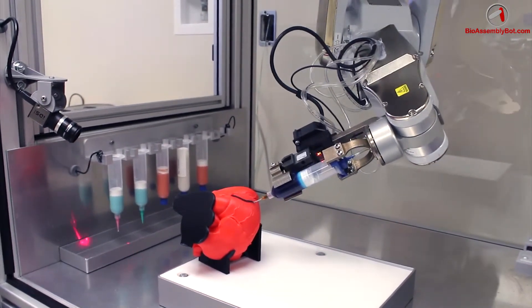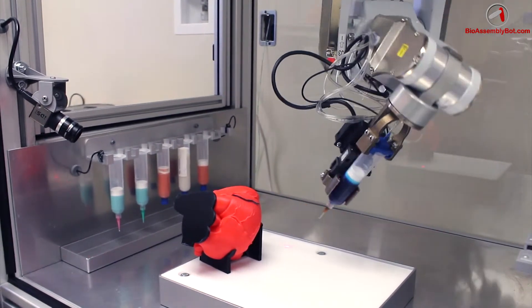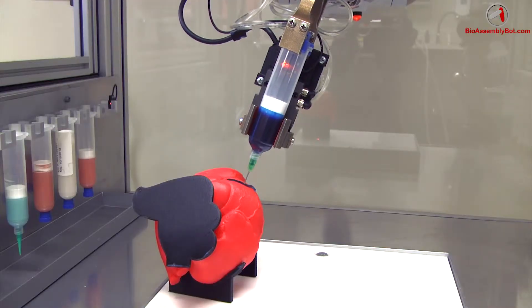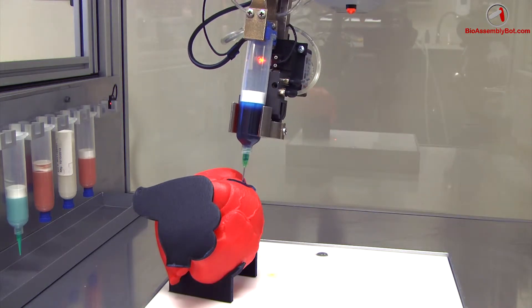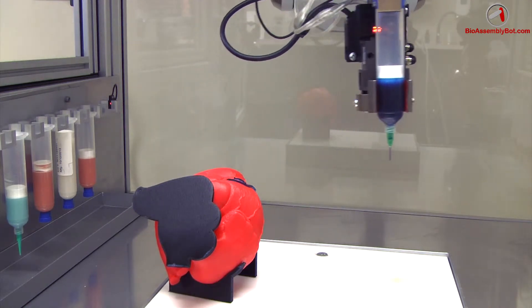and following the contours of that heart surface, begins printing this contrived vascular tree as the first step for our new vascular tree design.